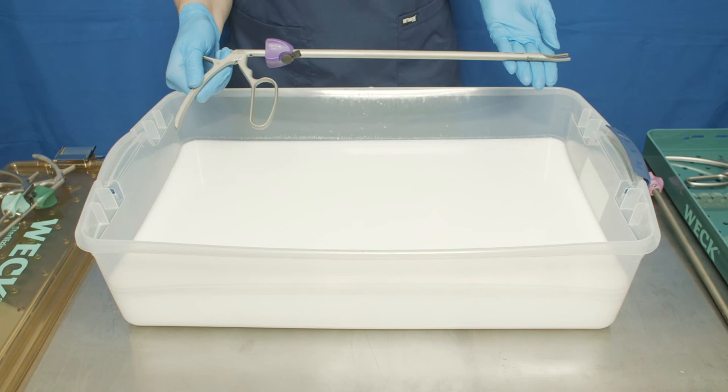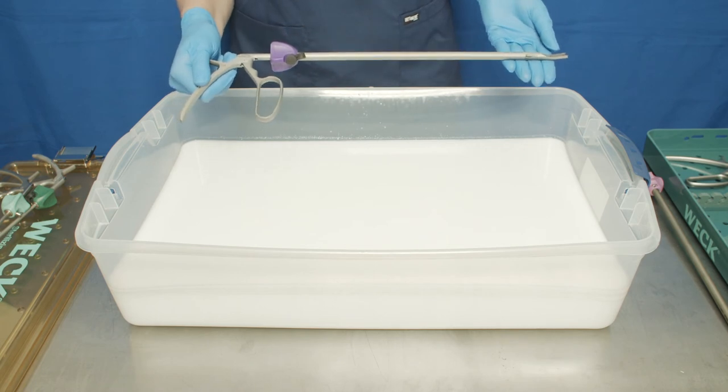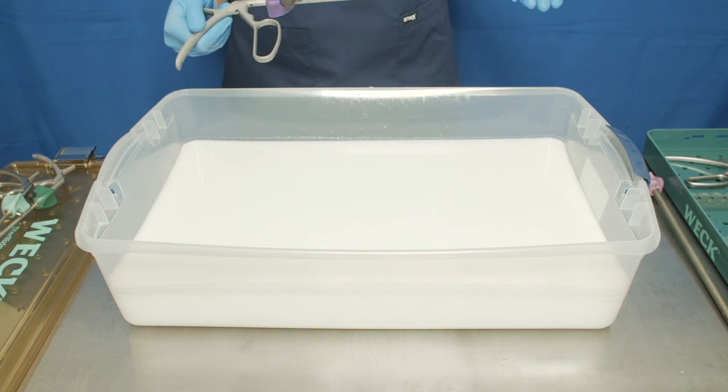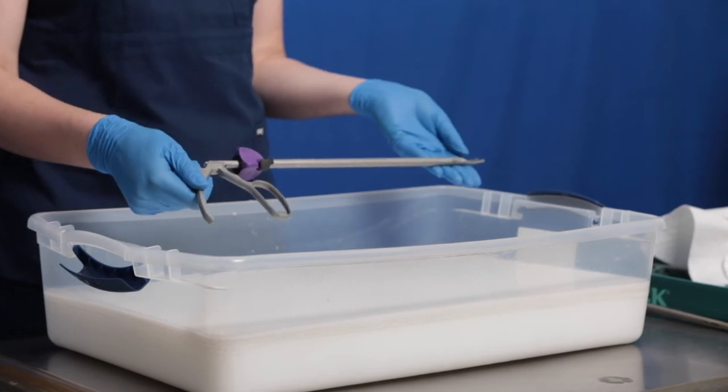Use a non-silicon water-based lubricant prior to sterilization. Do not use mineral oil, petroleum or silicon-based lubrication products.